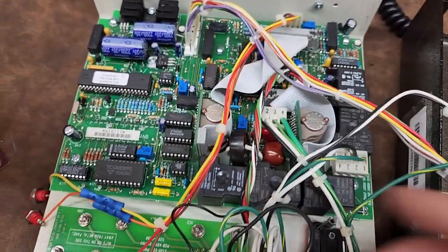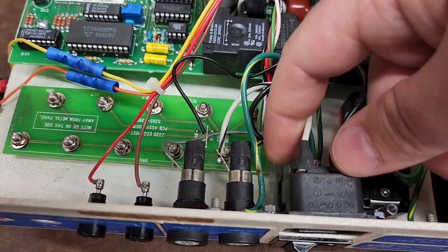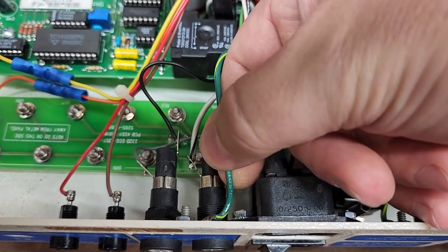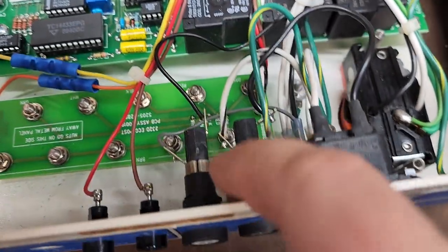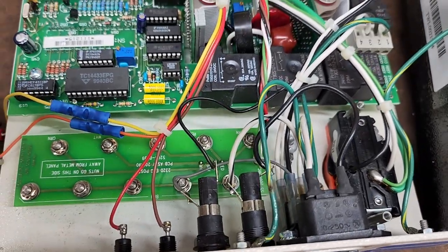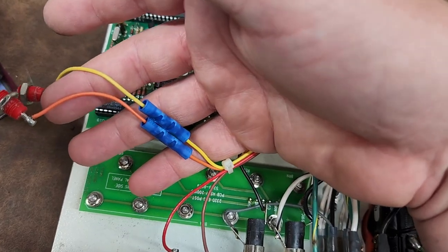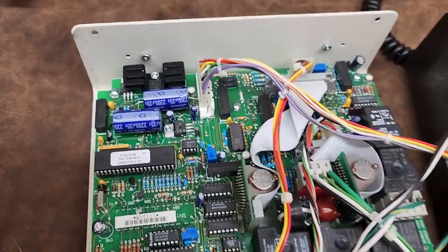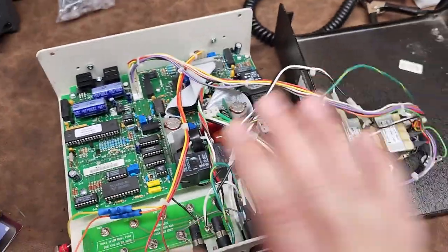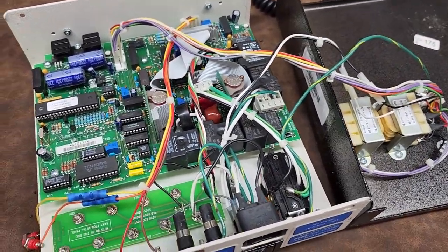It's got large ribbon cables and a lot of hand soldering on many of these connections. Somebody may have been in here before — or that could be from the factory, it's hard to tell. But if you do have erratic problems, open up your device and check it out. Stuff like this is a no-go — absolute no-go. If you have bad connections inside, make sure you get those remedied.